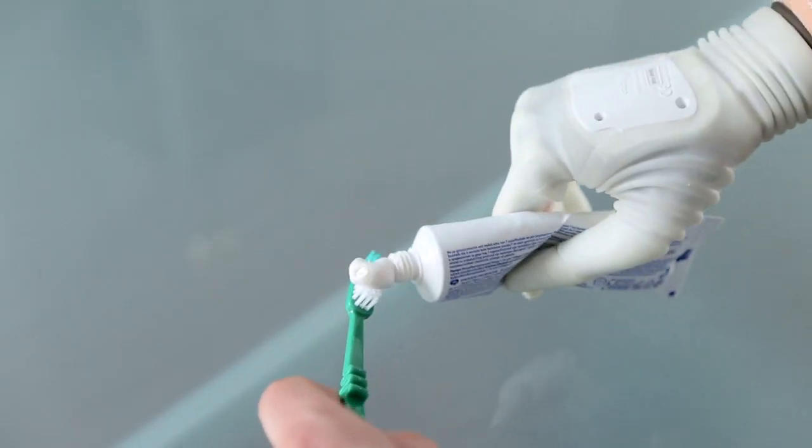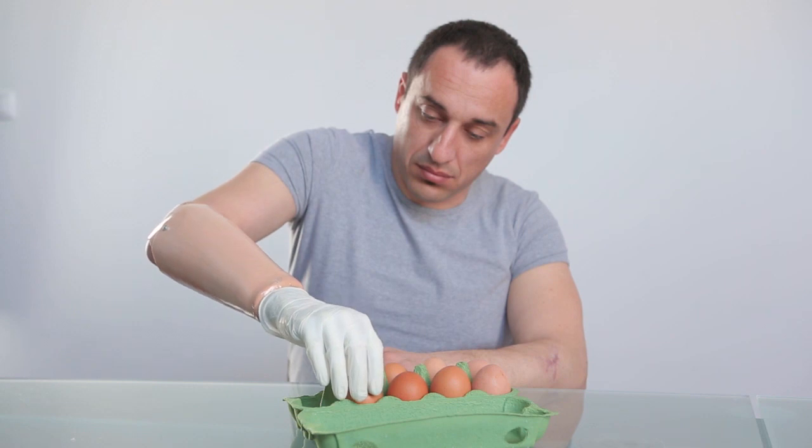Without feedback, otherwise simple tasks like pouring a glass of water, squeezing toothpaste, peeling a banana or simply grasping a breakable object become challenging.